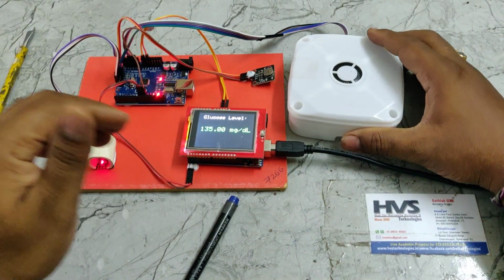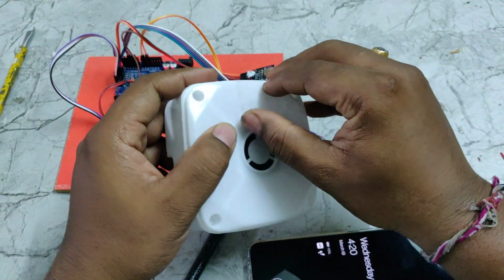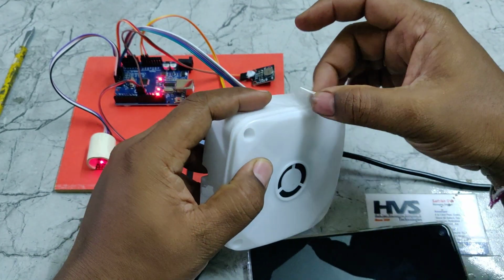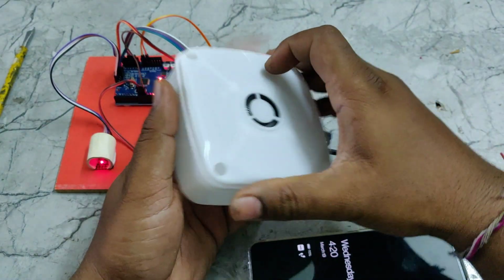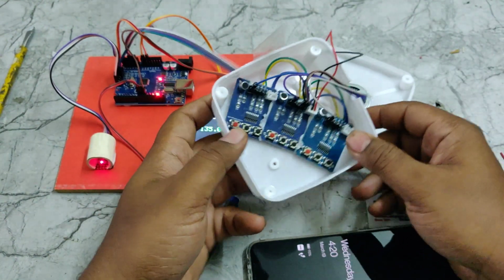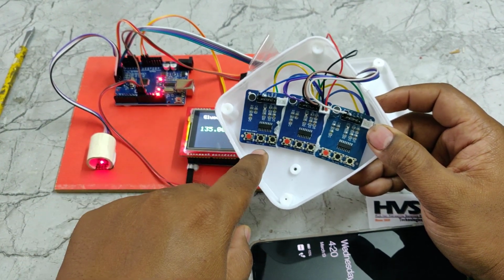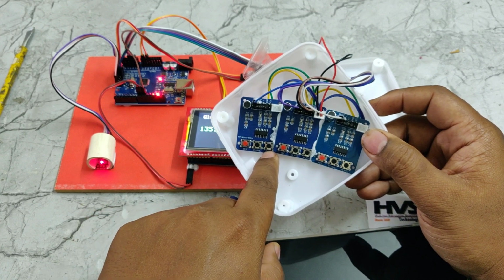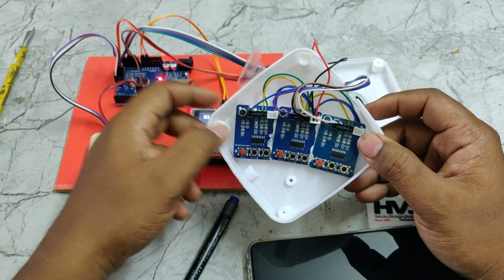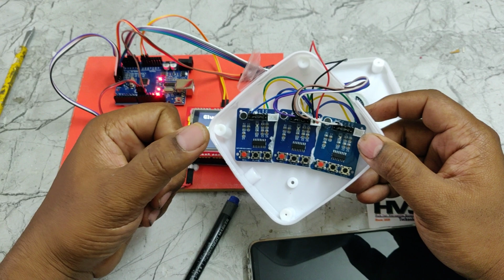And coming to the voice change here, let us change the voice, just by removing the plaster. You get 3 voices. Observe clearly: a red button for recording the voice, the middle button to play the voice, and the last button is just for loop, which you can neglect. So only keep in mind these 2 buttons are main. One is the record button. When you hold it until you release the switch, the system keeps on recording the voice.